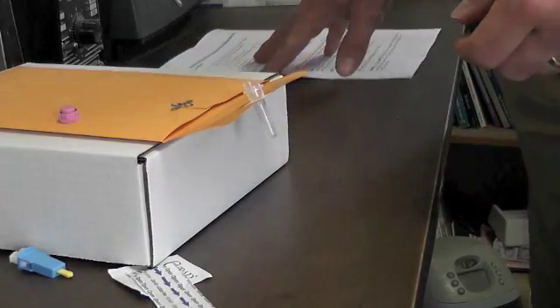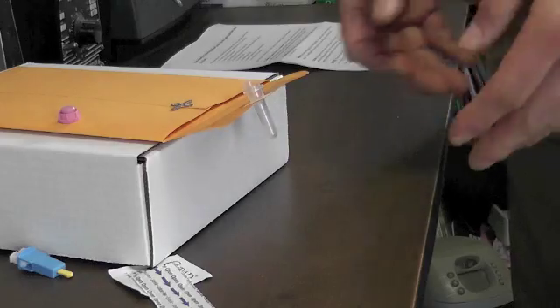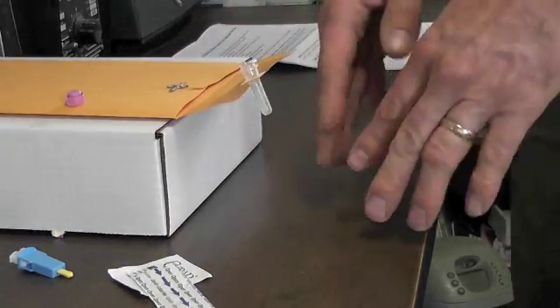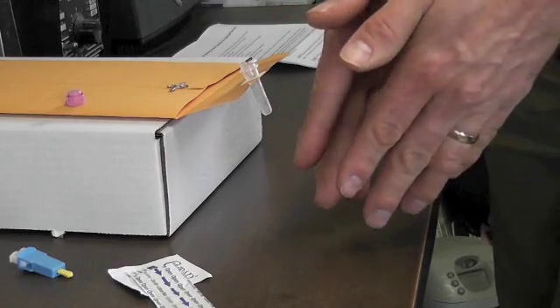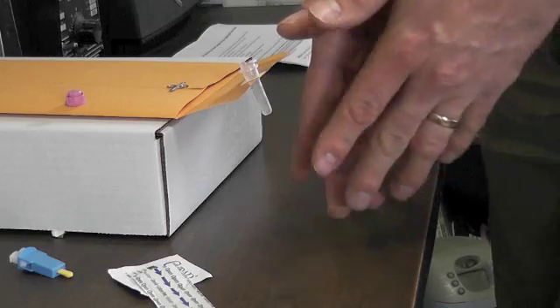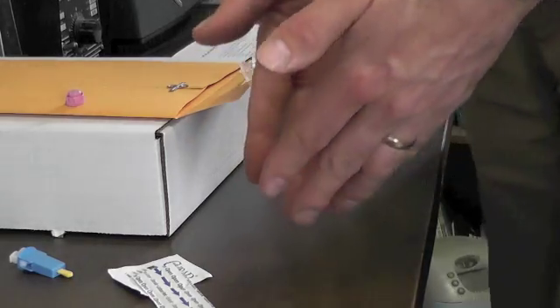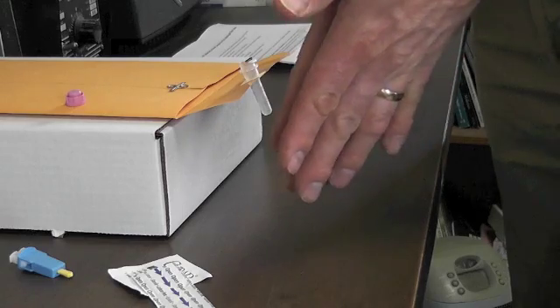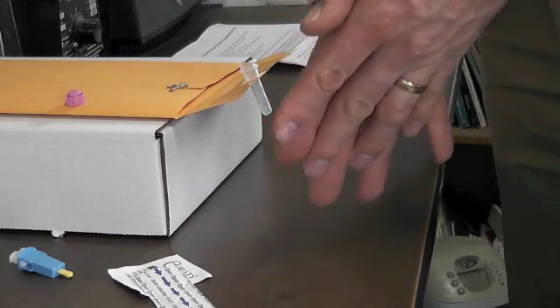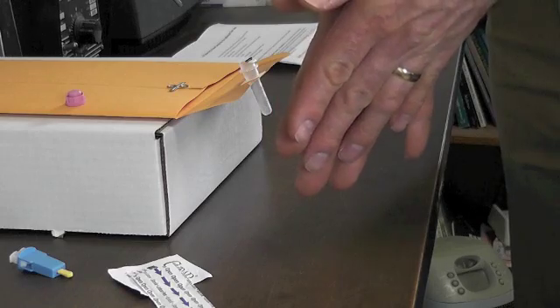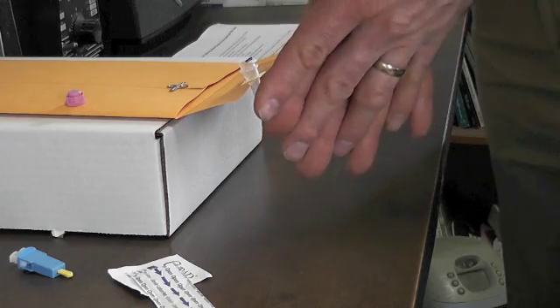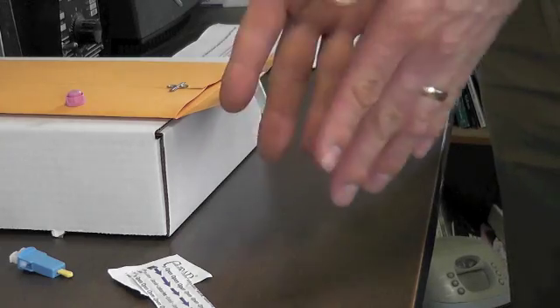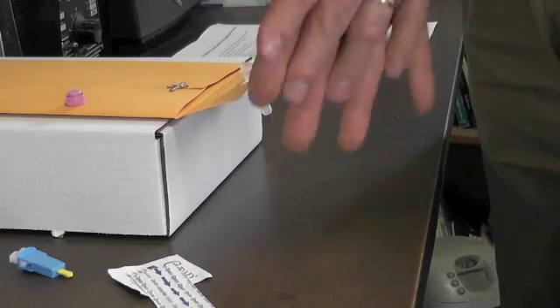Now you want to wash your hands really well before you do this so they're nice and clean. You don't want cold hands, you want to be warm. You may want to drink a glass of water about 15 minutes before you're doing this so you're well hydrated. Warm hands and hydration help make this a lot easier. Cold hands and being dehydrated make it really hard. So after you've washed your hands, make them nice and warm.